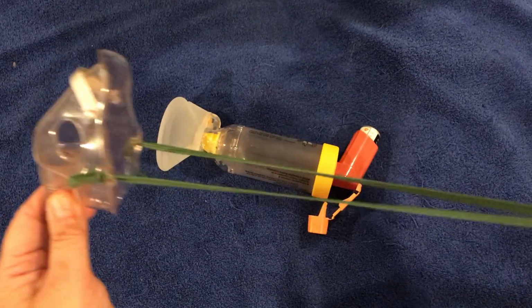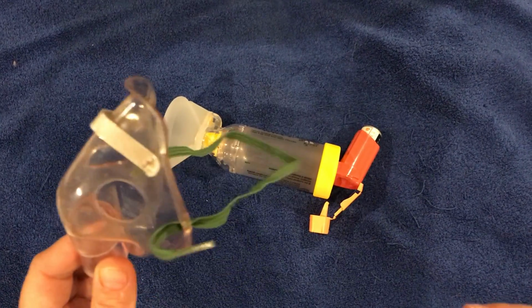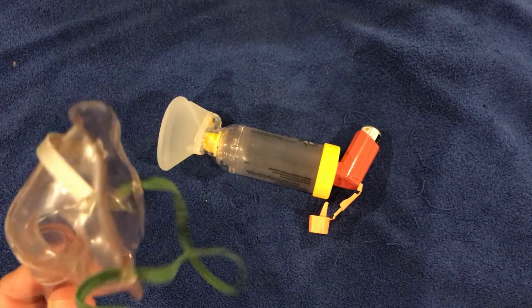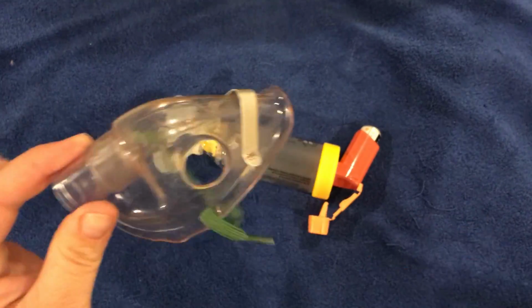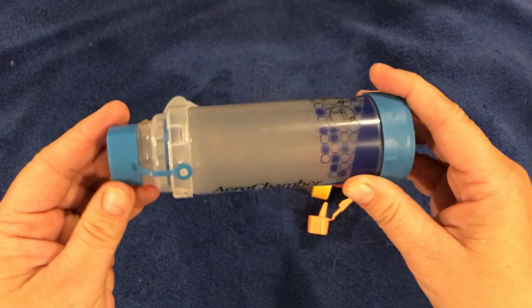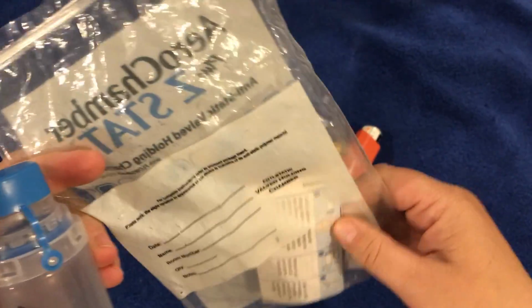But you see, this one you can attach if the child is small and doesn't really help too much to take the medication. We can use this one here. It comes with an attachment that I don't have here. And this one I was talking about is for adult. We always inspect the packaging, see if it's clean, keep in a dry place, check the instructions.